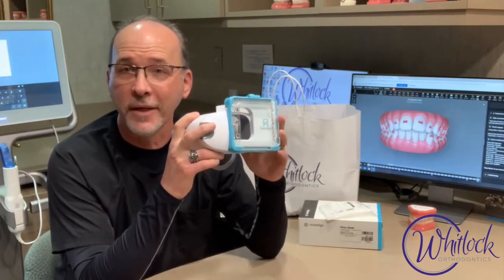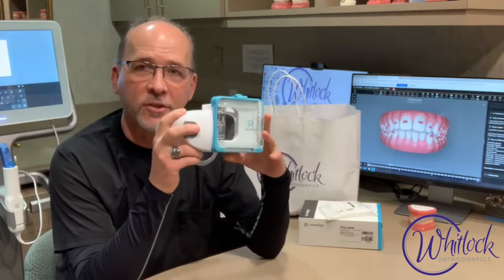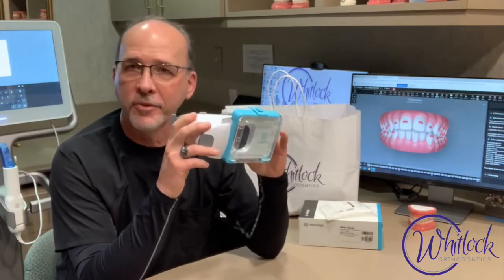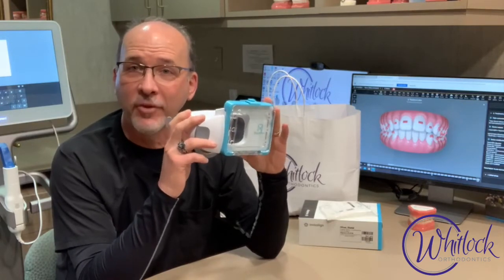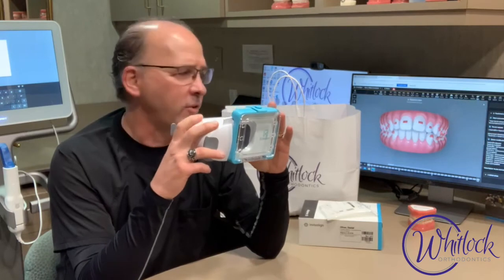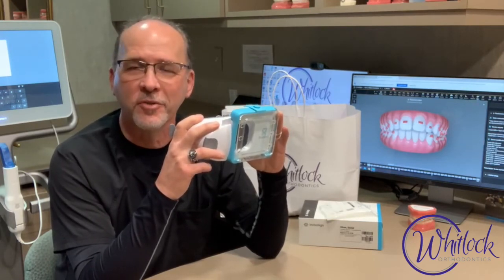I'm seeing you every week, but you don't have to see me nearly as often. The technology is so cool. Make sure that you follow the directions in the info we give you and that you keep up with your scans. Go ahead and take one tonight if you haven't already, so we can get you started down that journey. There's some other really cool stuff in there and some little videos you can go through on how to use those.